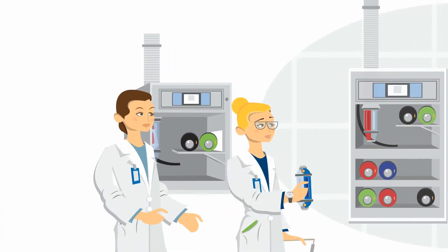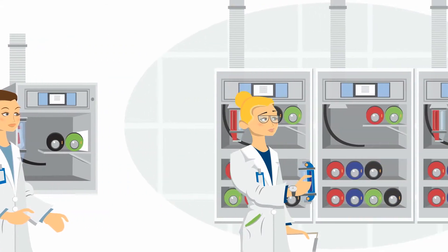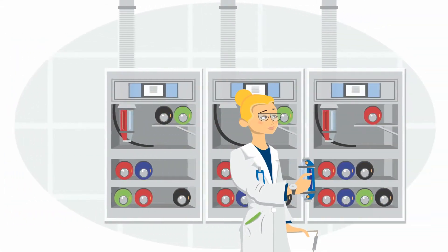That's why hospitals use pneumatic tube systems. But not all are created equal. There's traditional, bypass, and smart path.